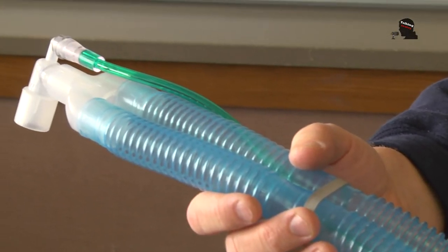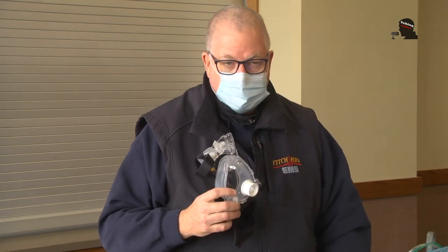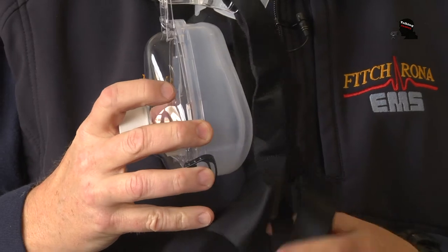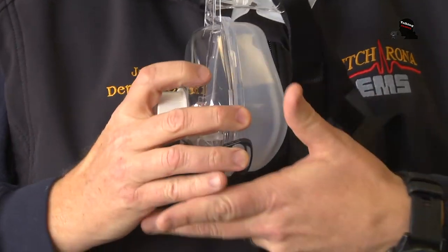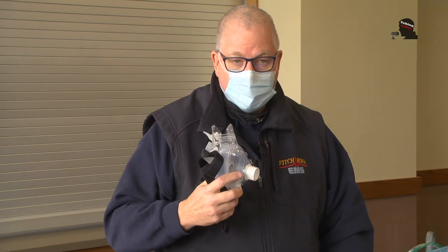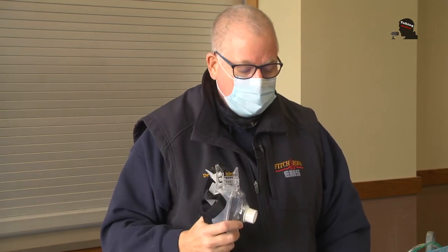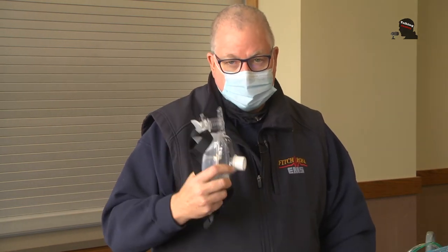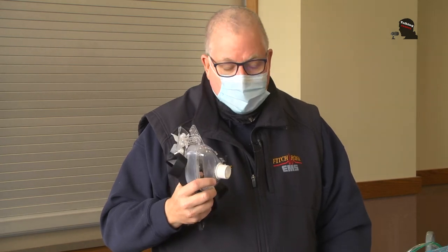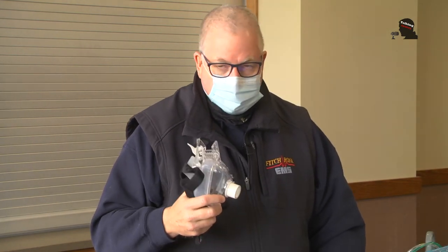Another important part of the vent is the ability to provide CPAP and BiPAP for patients having respiratory distress. We can provide CPAP now with a mask, adjusting the amount of oxygen going in to give them the pressure. With the ventilator we can also provide BiPAP. Where CPAP is a continuous positive airway pressure, BiPAP gives you pressure on inhalation and exhalation. Somebody on BiPAP breathes a lot easier during respiratory distress than on CPAP.